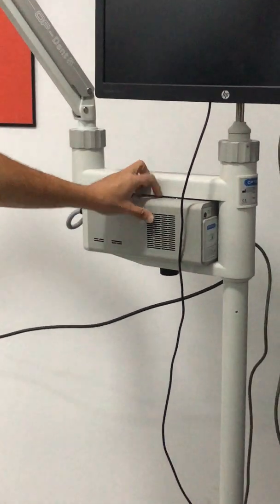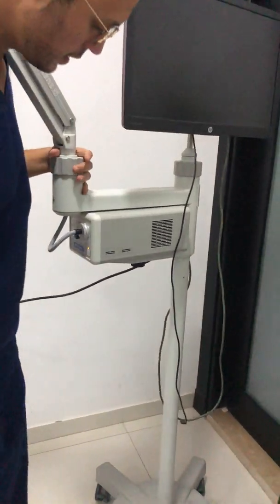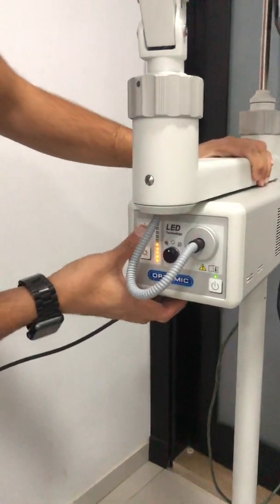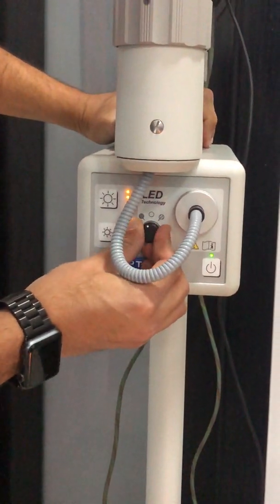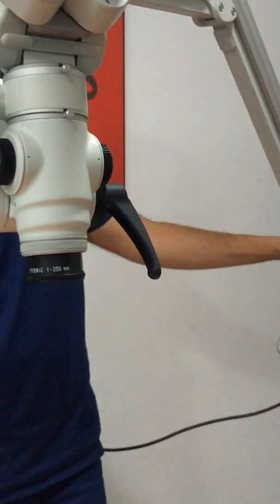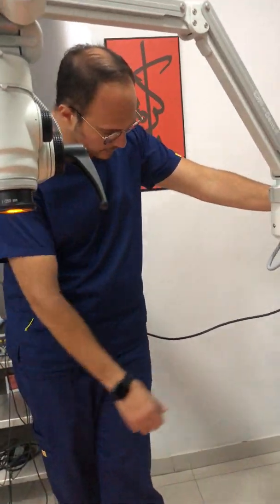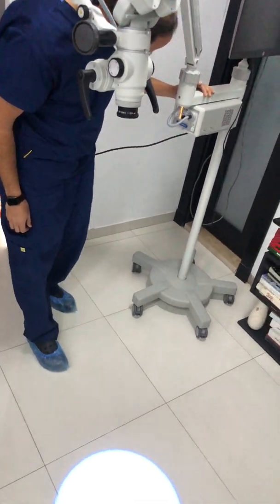The second thing that comes with the microscope is the LED power source, which is on the outside of the microscope. You can see the controls from this aspect — the power buttons are touch-like. You have options for filters and for the light intensity. The company states the microscope provides 100,000 lux, which I think provides very good and clear optics.